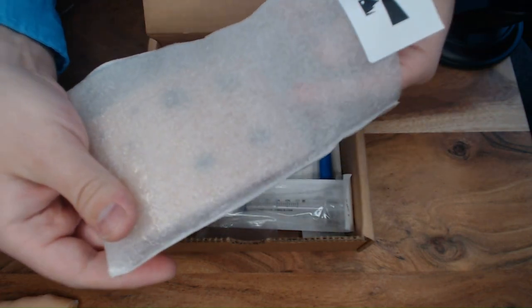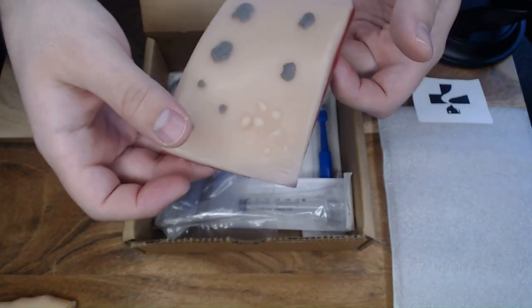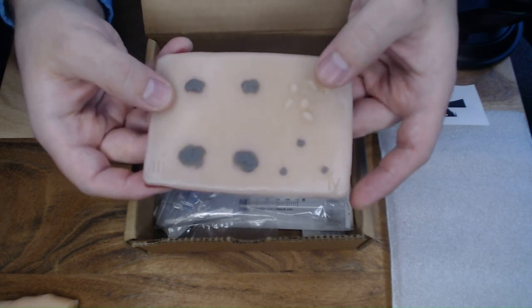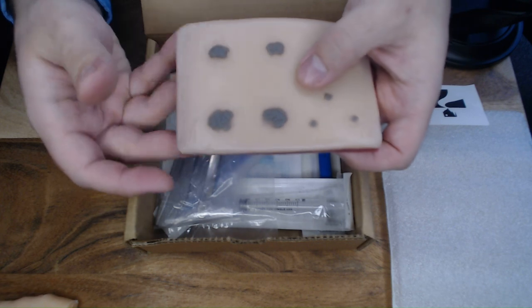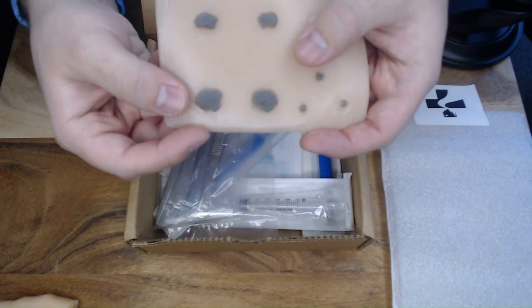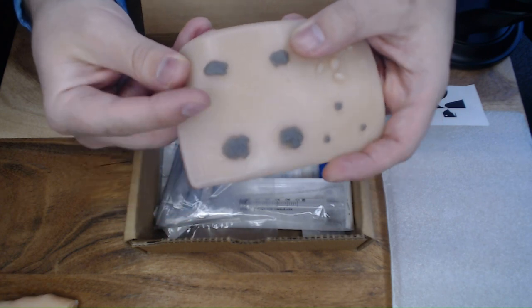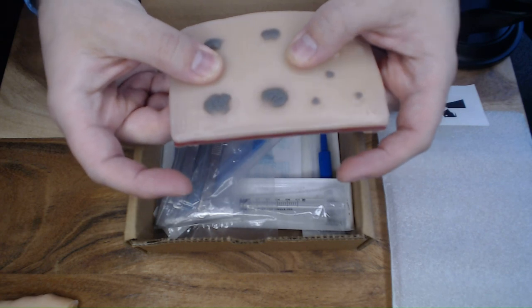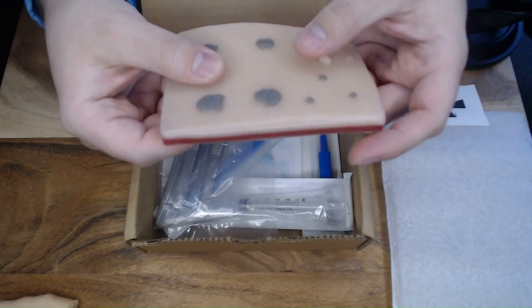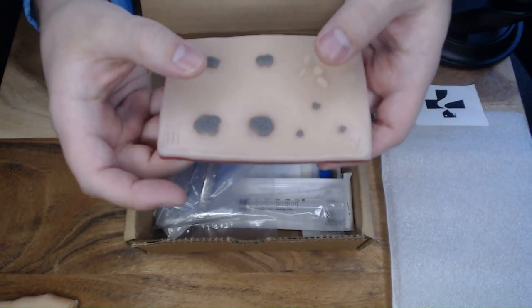The next product is the piece that took the longest to develop — incorporating all those components. You can do skin tag removal, punch biopsies, and the mold includes seborrheic keratosis lesions where you can do a complete removal with the shave biopsy technique. There's real depth to all the lesions. On the back we practice elliptical excisions, and the mold gives the ability to add tension or traction to the sides, allowing for Z-tracking when performing biopsy techniques.